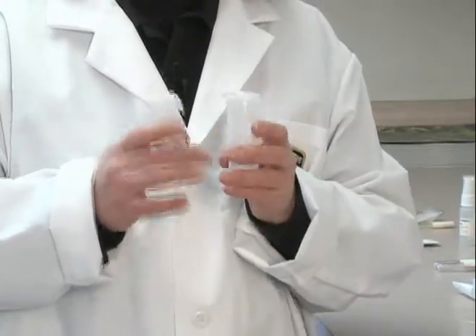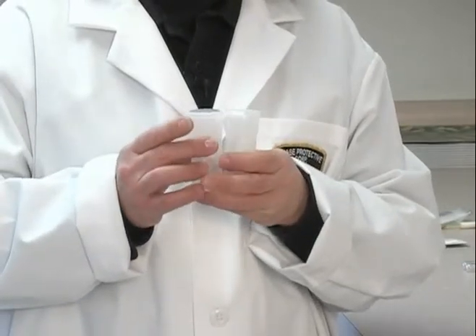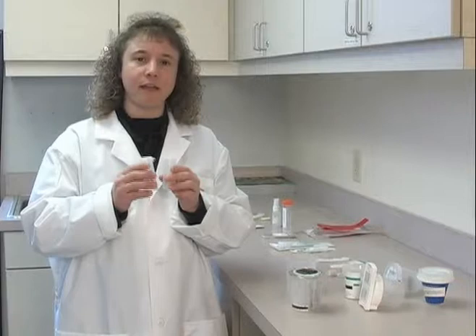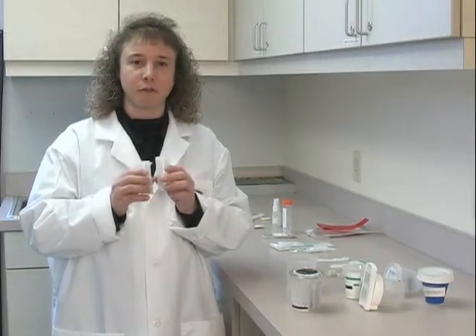On the vials you have A and you have B. The urine is put into the vials, then a sealed strip is put on them for A and B. Once the seals are put on, the person initials it. They are then put into another bag, sealed, and sent to the laboratory for testing.